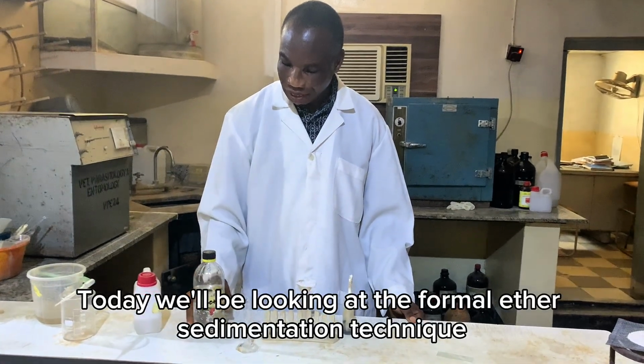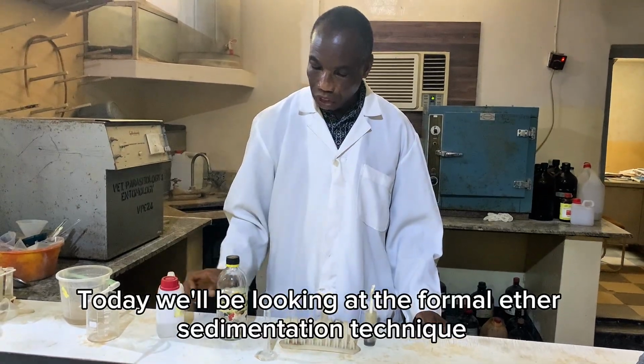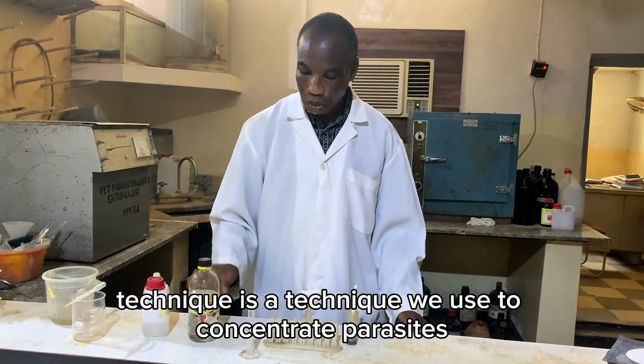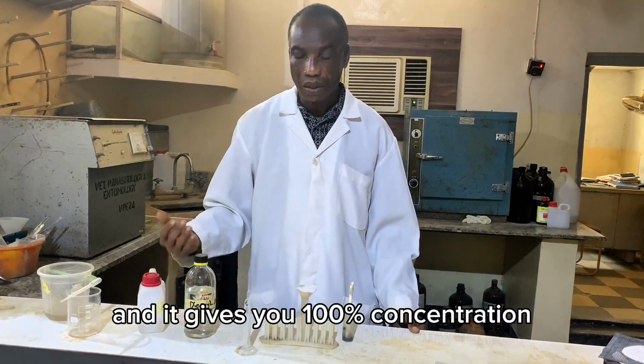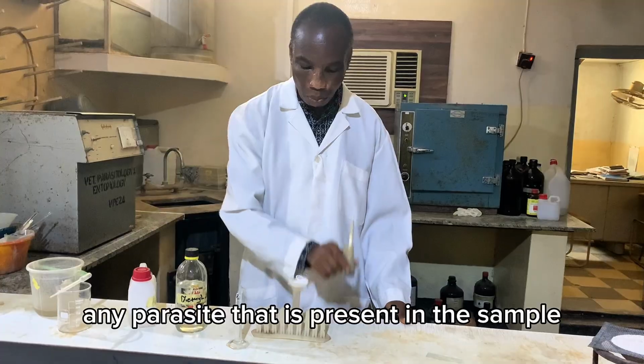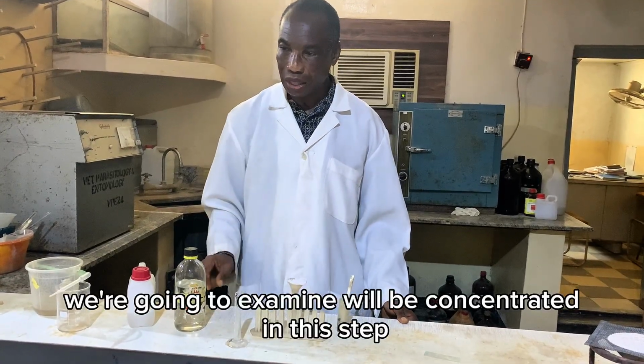Today we'll be looking at the formal ether sedimentation technique. The formal ether sedimentation technique is a technique we use to concentrate parasites, and it gives you 100% concentration. Any parasite that is present in the sample we're going to examine will be concentrated in this technique.